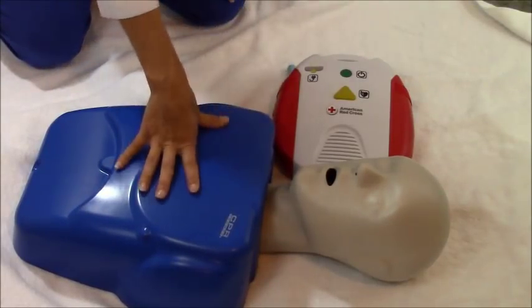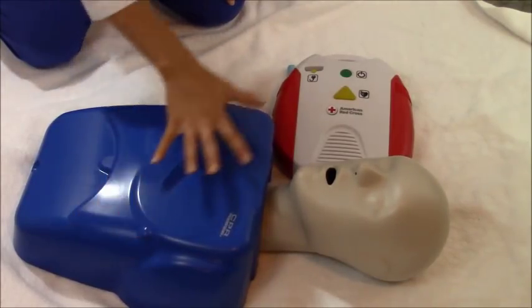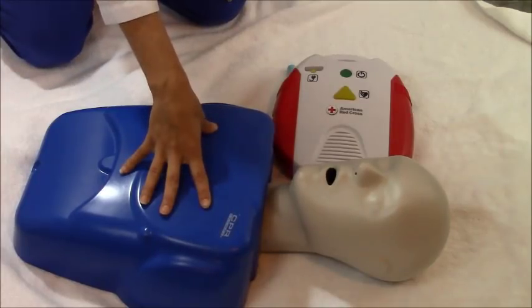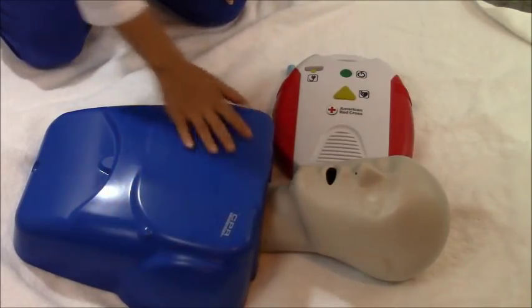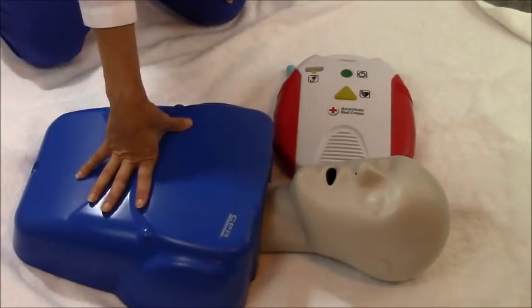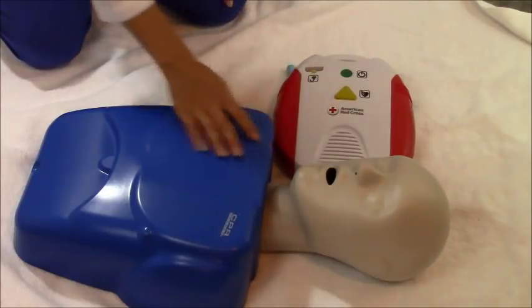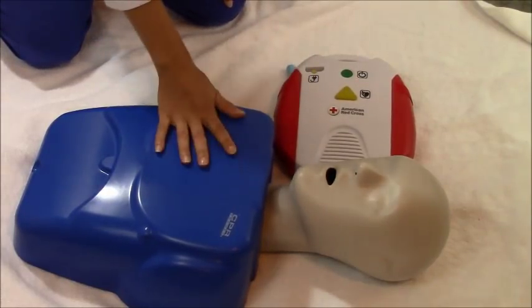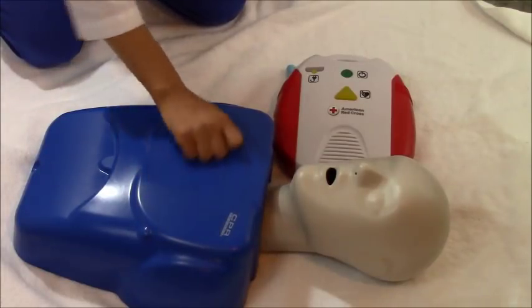You must get that hair off if possible because it acts as a barrier and may prevent the best shock delivery. If the patient was submerged in water, move them out of the water — electricity and water do not mix. If there's a lot of water on the chest, dry it off with a towel. In snow or a small puddle it's okay. If the patient has an implanted device like a pacemaker, you'd feel a large lump; don't place the AED pad over it, as the device could block transmission of the shock to the heart.